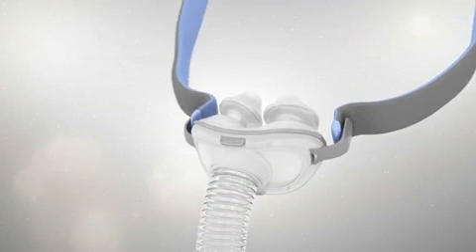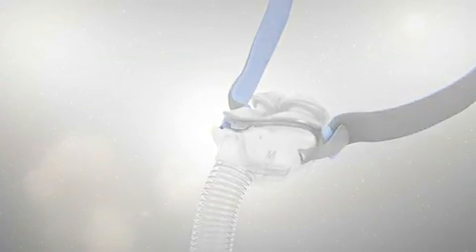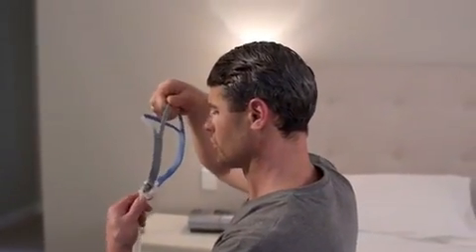The enhanced pillows fit easily with upper and lower clips. You simply squeeze to remove them, and the QuickFit elastic headgear adjusts to each patient's head and can be fitted in less than 30 seconds.